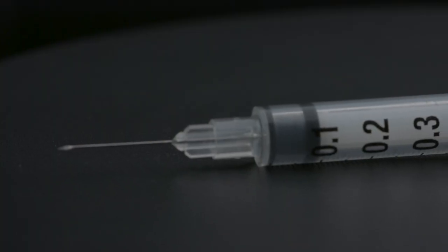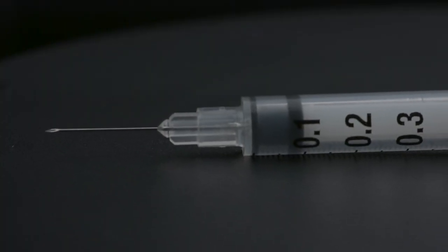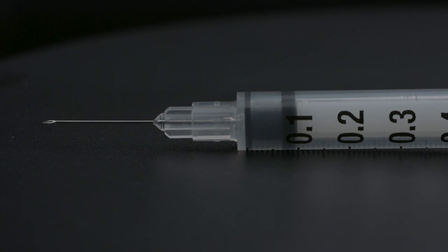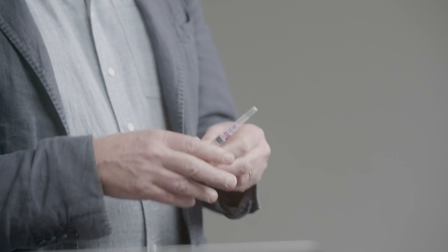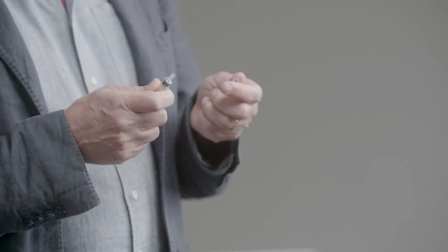When needle exchanges first started there were basically two types of needle and syringe combination available. There was a fixed one mil syringe with the needle attached during manufacture, which has a very low dead space of only three microlitres, and then there were luer slip and luer lock syringes for detachable needles.